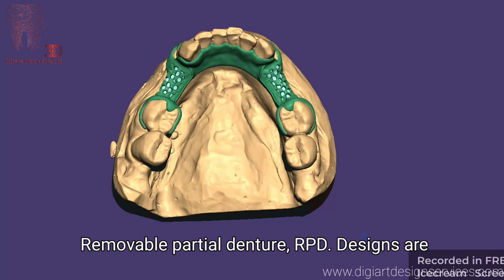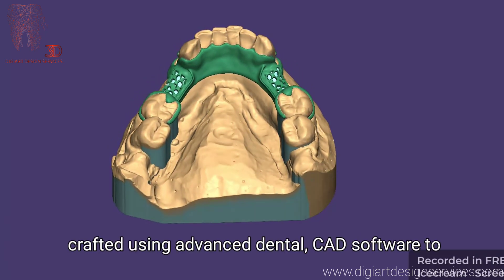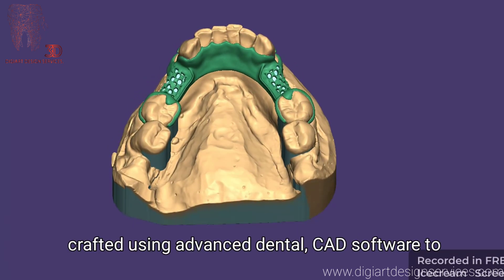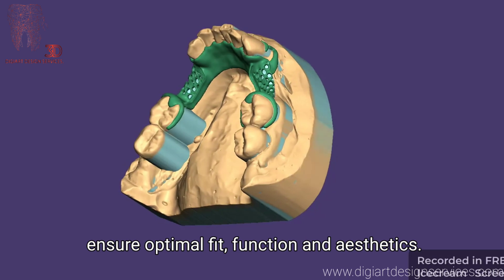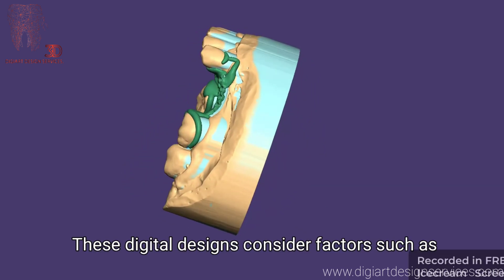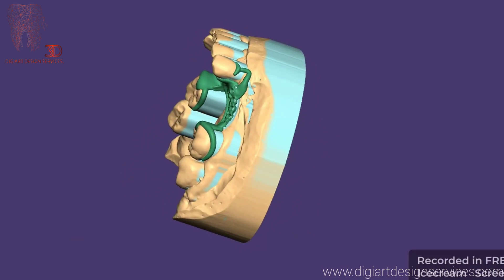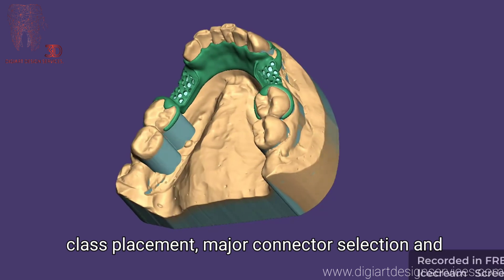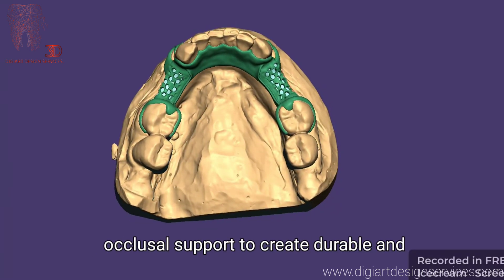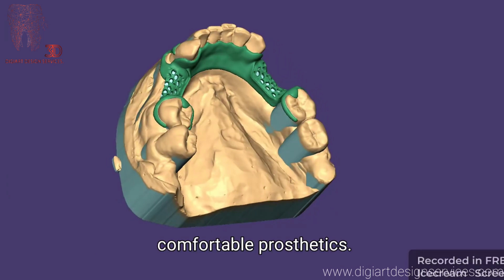Removable partial denture (RPD) designs are crafted using advanced dental CAD software to ensure optimal fit, function, and aesthetics. These digital designs consider factors such as clasp placement, major connector selection, and occlusal support to create durable and comfortable prosthetics.